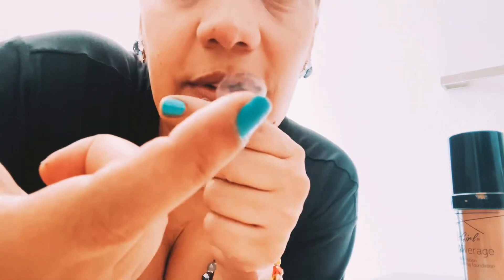If you forget which eye you just put a contact into, just open both eyes — you'll know which one is missing the contact by the blurry vision in that eye.